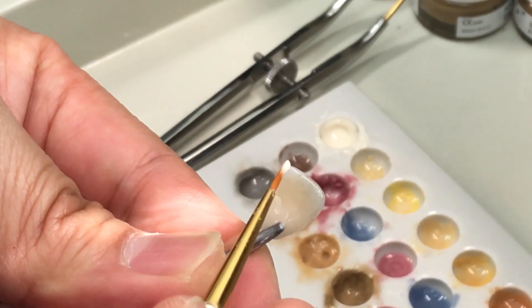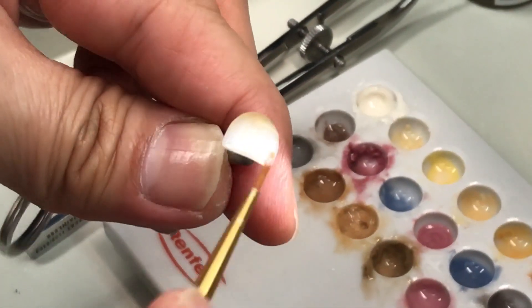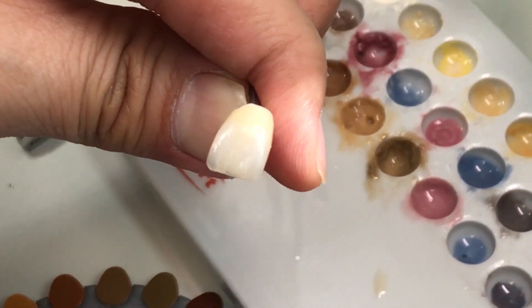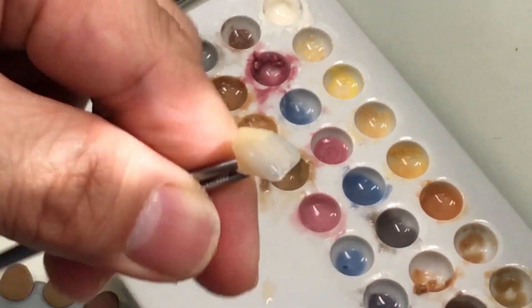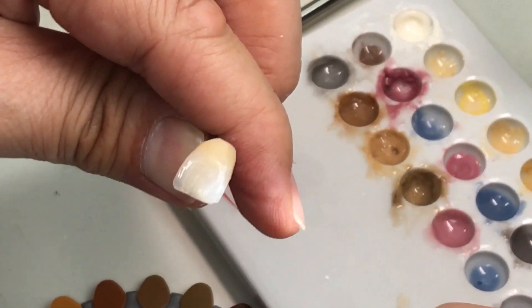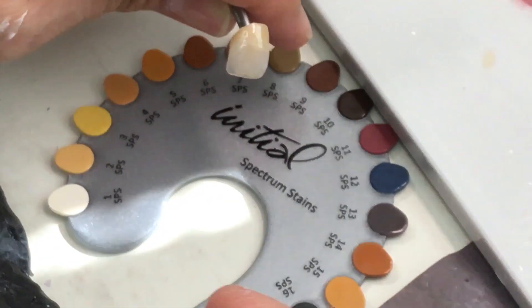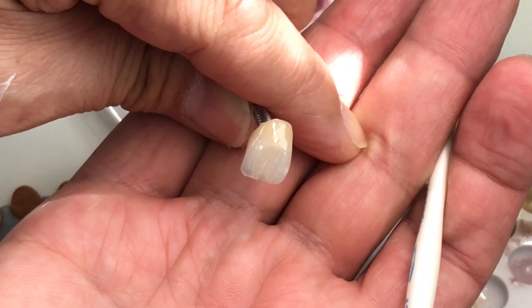On top of that I have applied a creamy color — can you see? There's another trick: the coat to me is like a makeup. I continue to do this subtly. I also use a little bit between the tooth. This is better, makes more sense. So I'm using the spectrum color with an after layer.